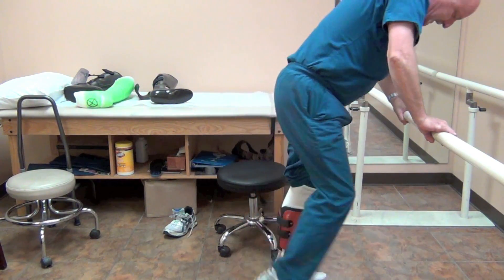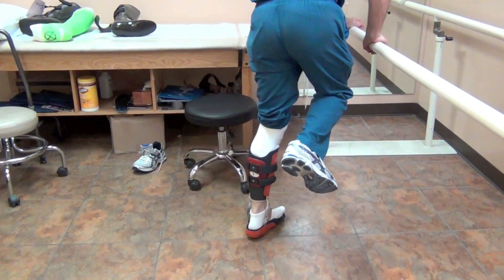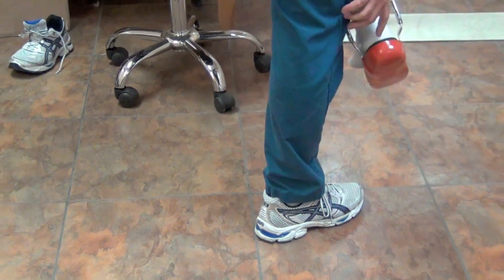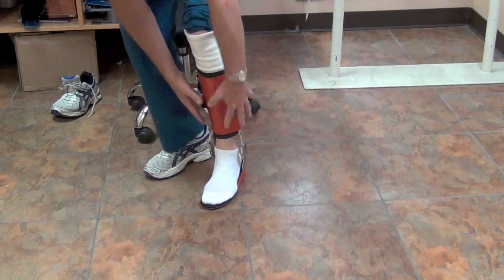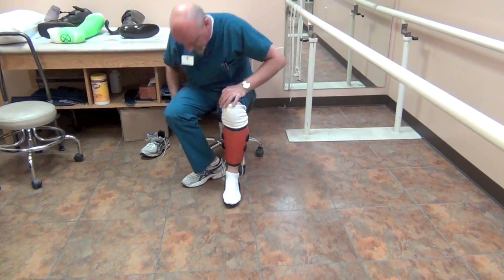I don't know if you can see this very well, but my foot is completely suspended out of the back of the AFO, and I'm jumping up and down and it is not touching. It is very, very comfortable because it covers a large area — it's very tolerable.